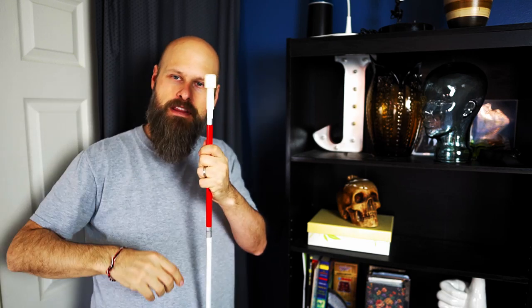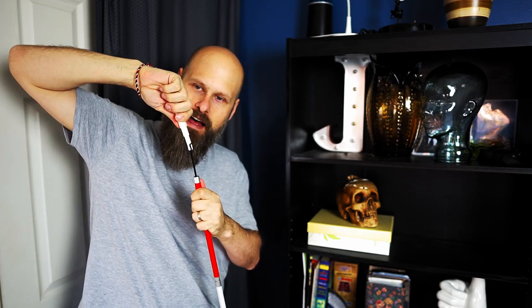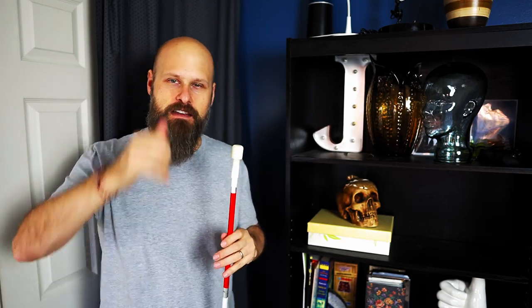A very easy way to do that is to simply gently pull the tip out of the cane. Grab onto the cane and pull the tip straight up, straight up and out, and investigate. See if it is a hook design or some other design that will allow it to come out. If it is, good, awesome, you're in luck. So here is how to change the tip.